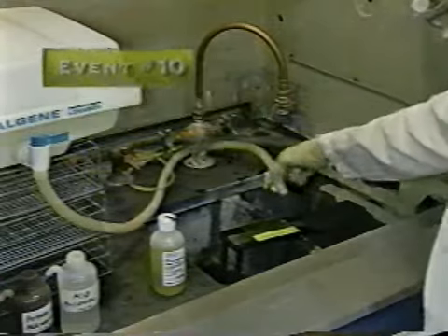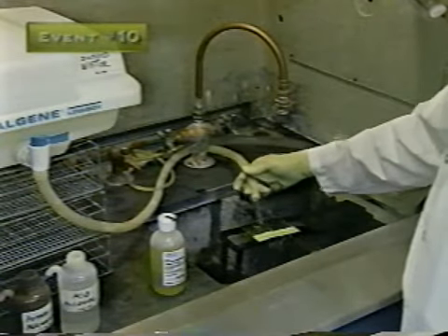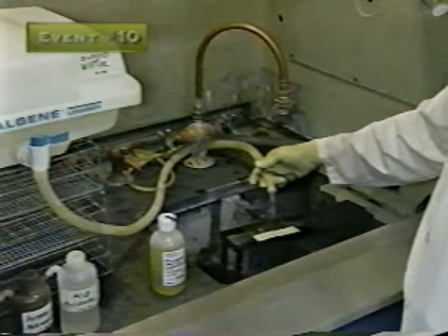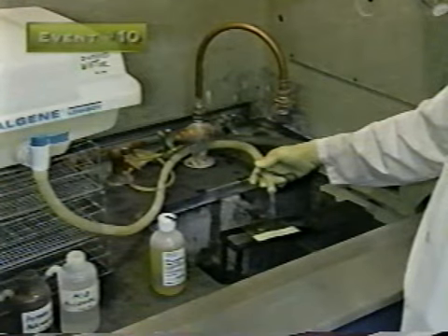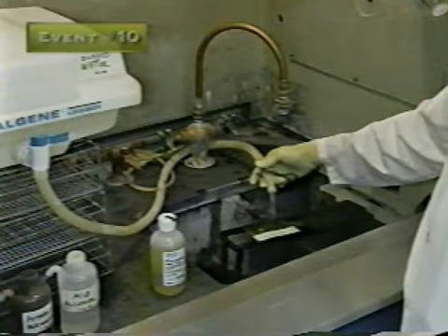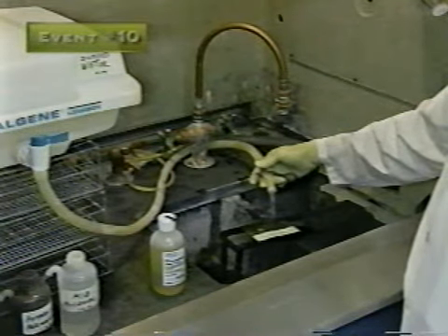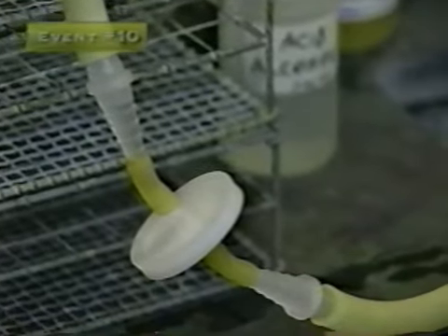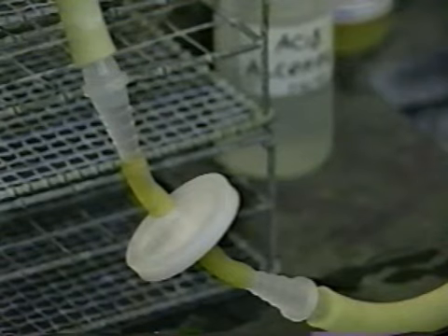Did you notice the carboy of water, the pinched rubber tubing? Remember, tubing with pinch clamps, carboys, storage tanks, or closed water taps, any place where water is allowed to stand, are potential breeding grounds for mycobacteria. Rather than using standing water from a jug, it is better to attach tubing to the cold water tap and flush the system before use, or to use slow-running tap water for rinsing the slides. If your water supply is contaminated with AFB, a membrane filter placed in the supply line should remove the organisms.